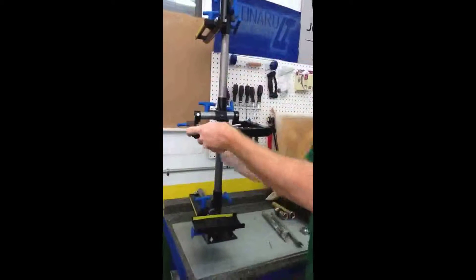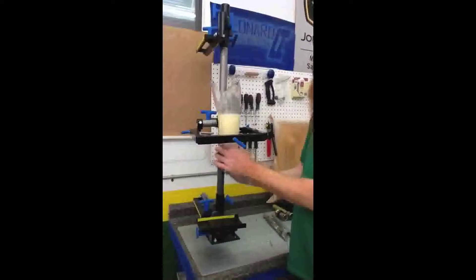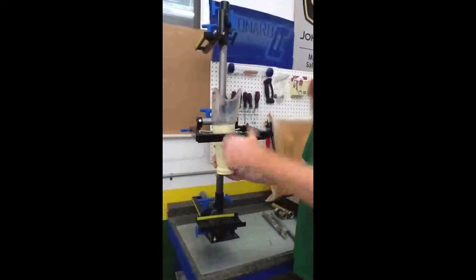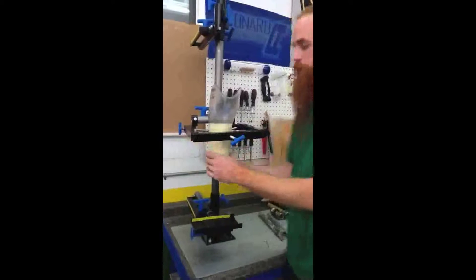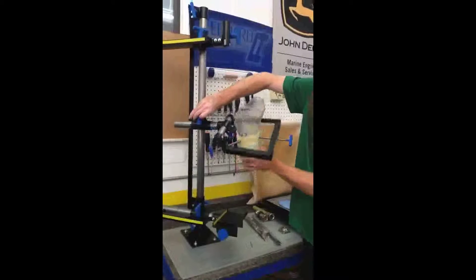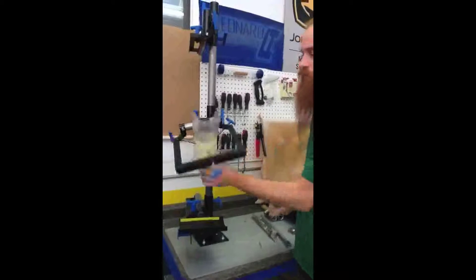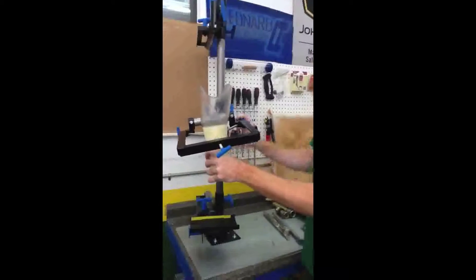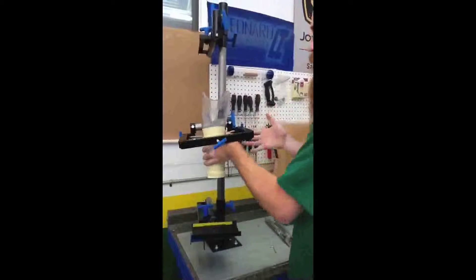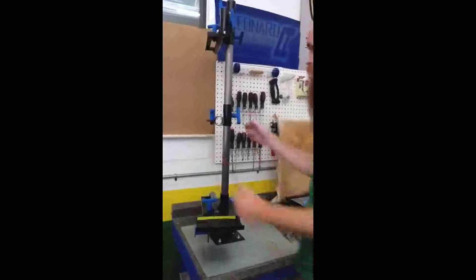Demonstrating here with a check socket: you want to set your check socket in with your knee center perfectly straight, perfectly back, or to the left or to the right, and that will give you superior control. I like mine straight on. Just get it locked in there with your 3T handles anywhere that feels secure so that it's not going anywhere. The handle on the side allows flexion, adduction, or abduction with your knee center completely at you. The handle underneath allows you to control flexion and extension. If you leave both of them loose, you have movement in any three-dimensional plane. When you're not using arm two, it slides out of the base and sets aside.